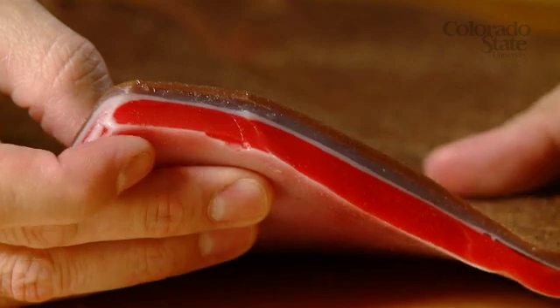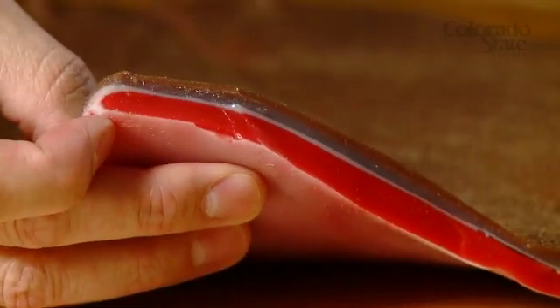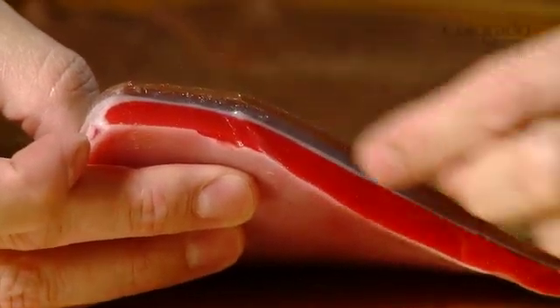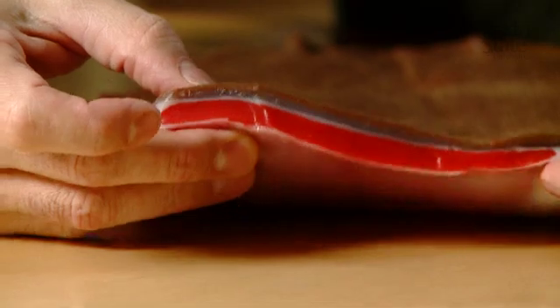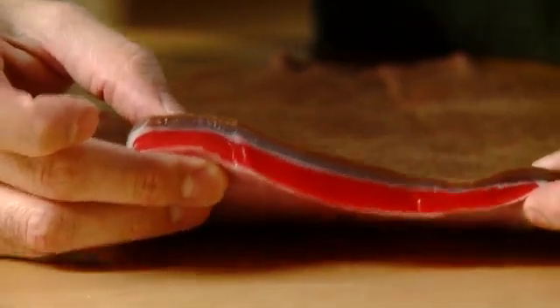Here we have a very superficial layer — that's the skin. A little more faint layer underneath that is the subcutaneous tissue, and a muscular belly in red right here, that's encapsulated by the fascia, which is a harder silicone. All these silicone layers have different consistencies which approximate what we found in the live tissue.